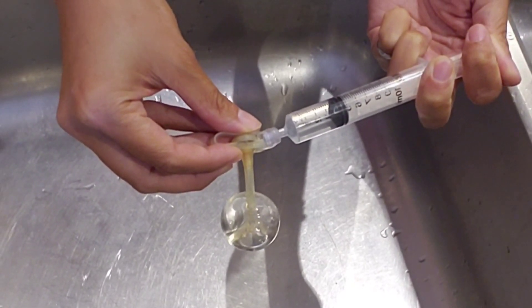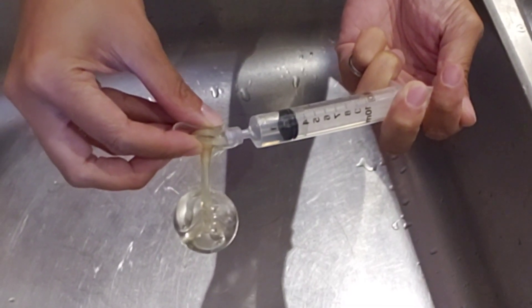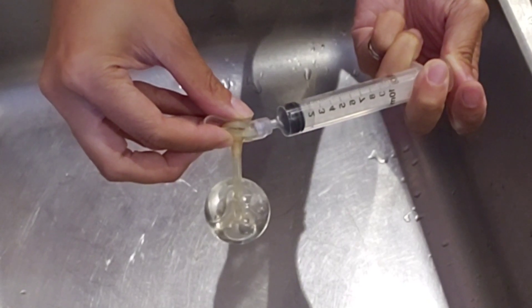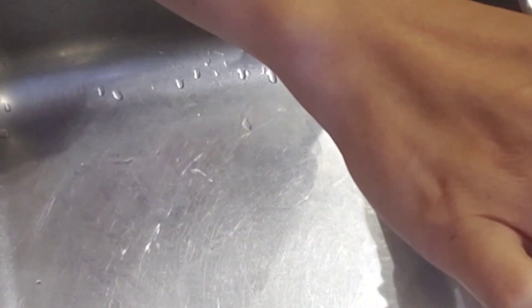Sixteen. Oh boy, it's so big — seventeen. Can I see it? Oh gosh, eighteen. Twenty — twenty, twenty, and it's still going? Oh boy, how long is this ever going to last? Hold on to just the stem while I get more water. Check it out everybody — that is a lot of water. Twenty mils of water in a mini button that's supposed to take four.